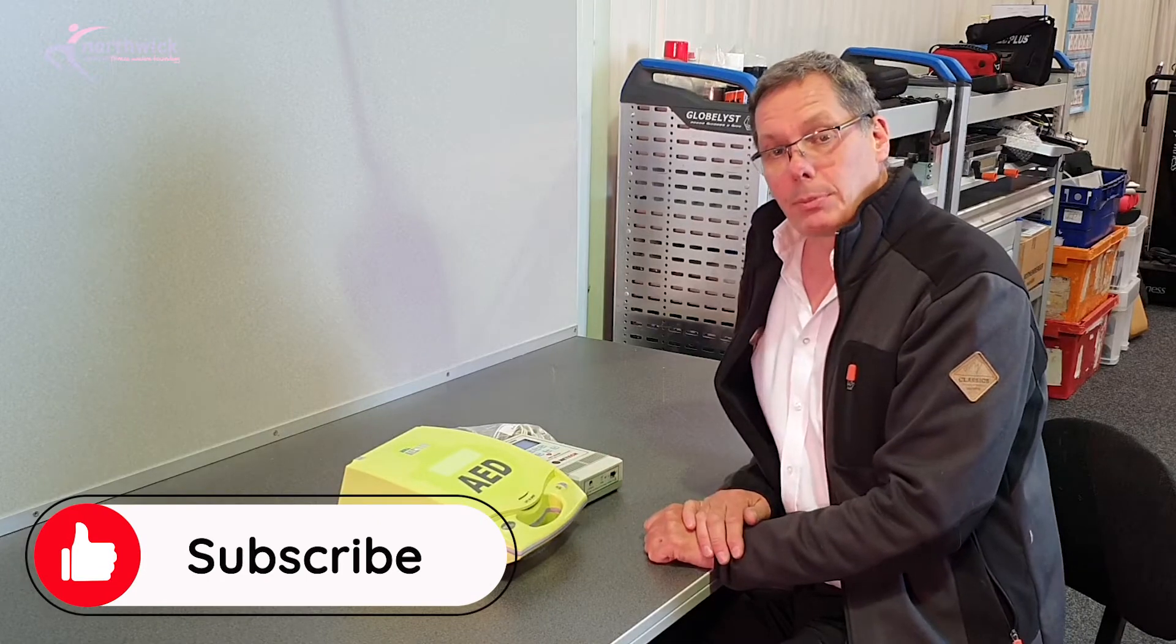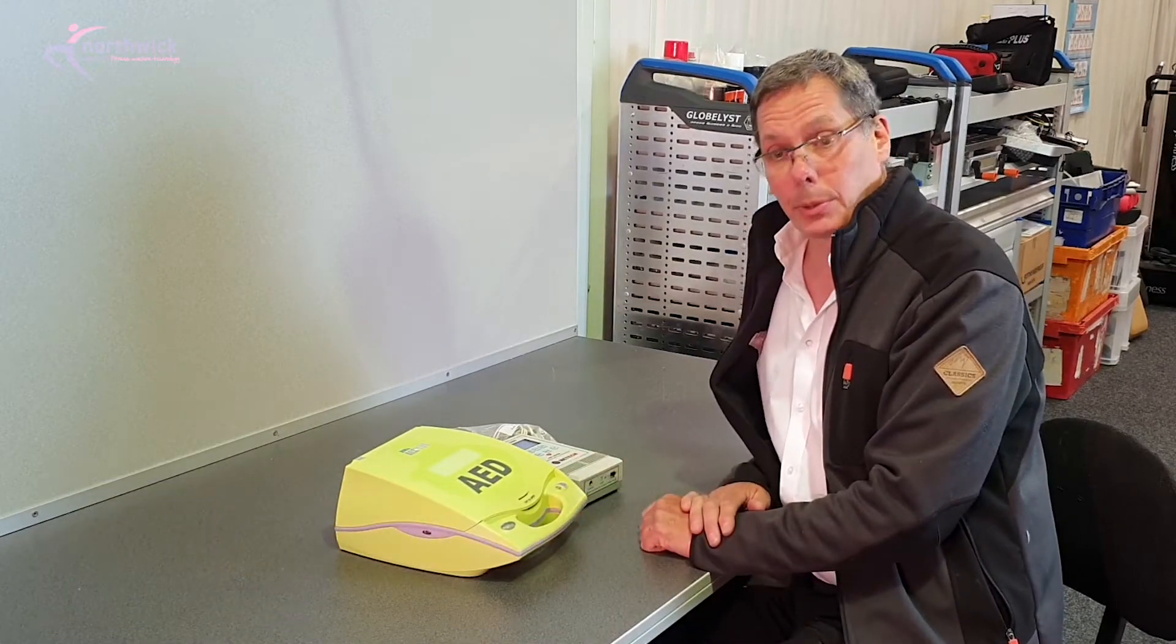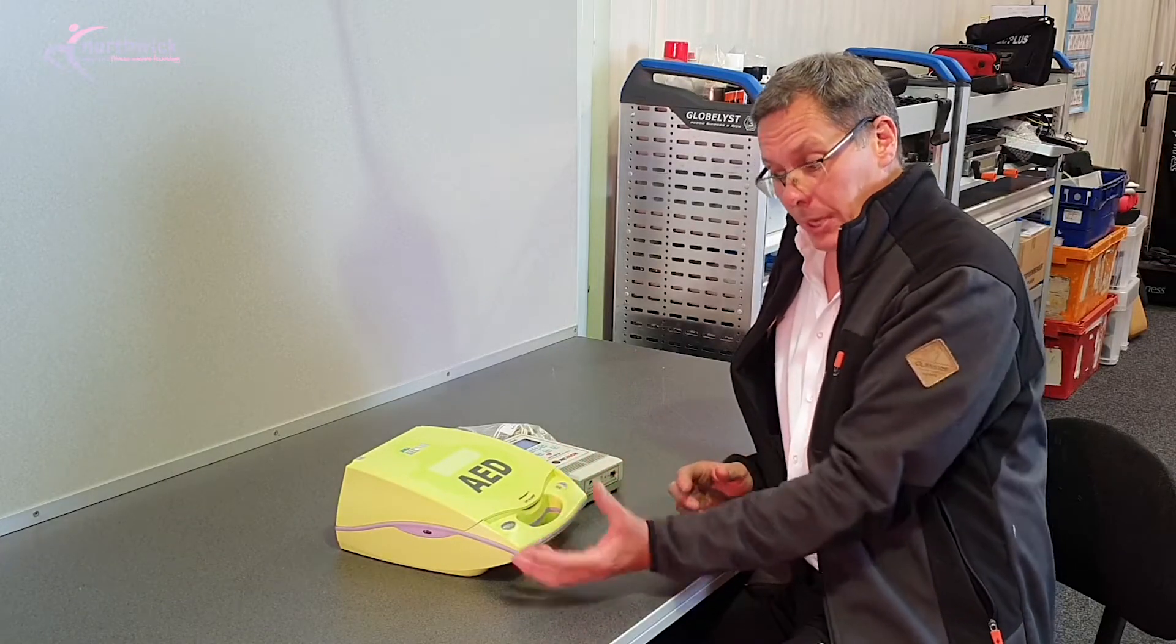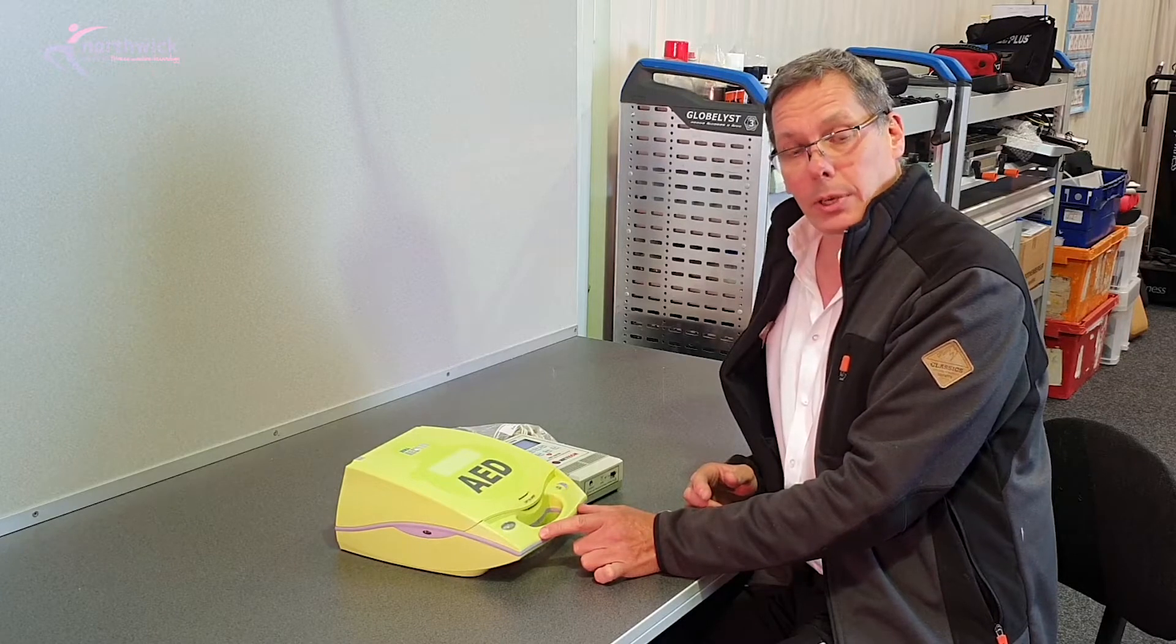If you see my previous video about how you can test these yourself, then you're probably seeing about 30% of the full cycle of what the defibrillator is capable of doing. In other words, if you believe the machine works, then you're only actually seeing 30% of what it can actually do.